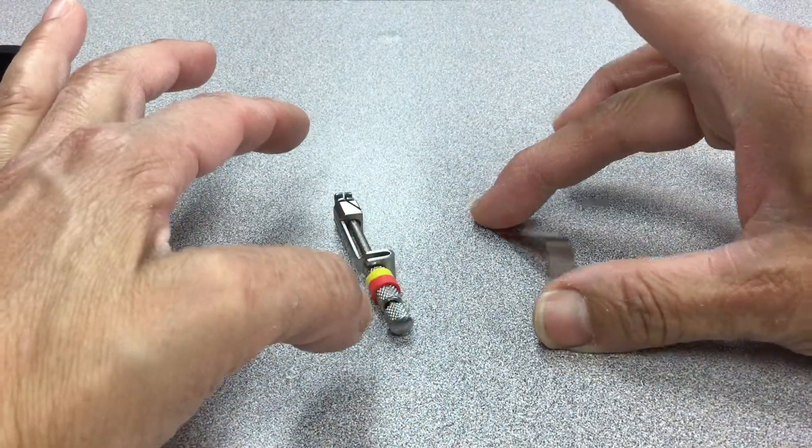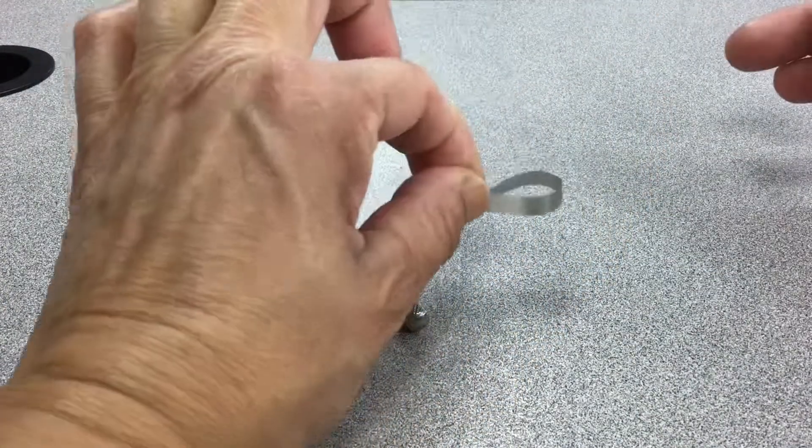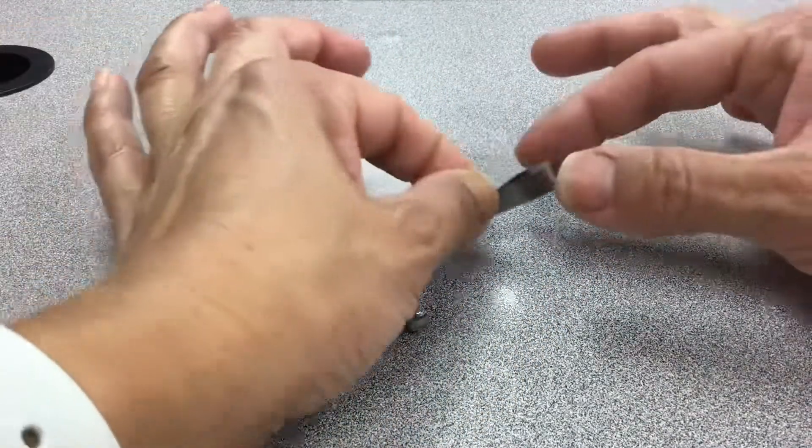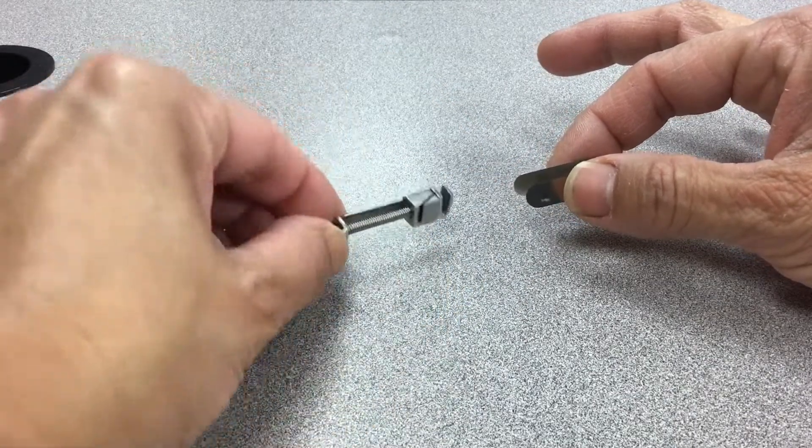You get the band, close it together, so it has the small end and the large end. Hold it like this, then you get your Tofflemire, which is up.